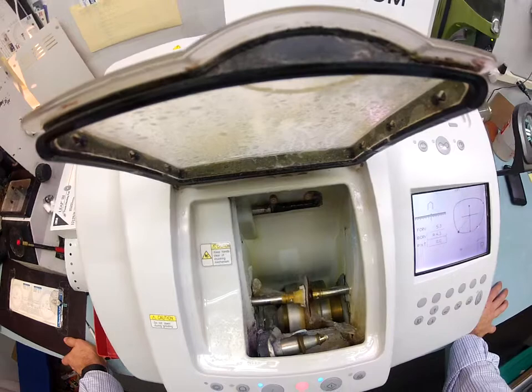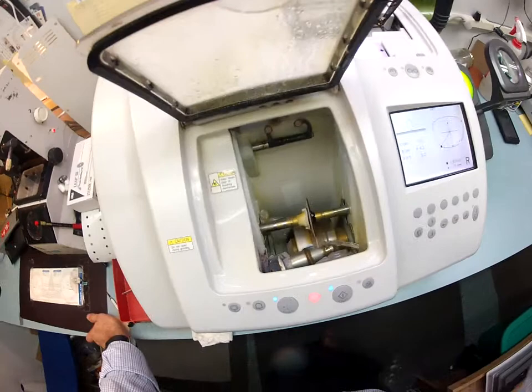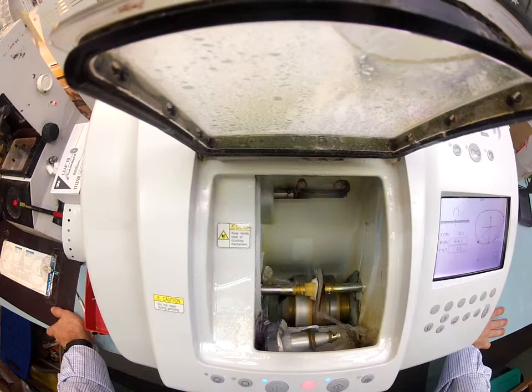I'm going to take this out in just a moment when it's done and see if it fits. I'll be quite shocked to see if it does fit on the first time. The larger 55 eye size has a deeper bevel, and I usually have to take it down a little bit more than the 52. You can always cut more off of a lens — you can never add it back on. So I always start a little bit larger and work my way down.